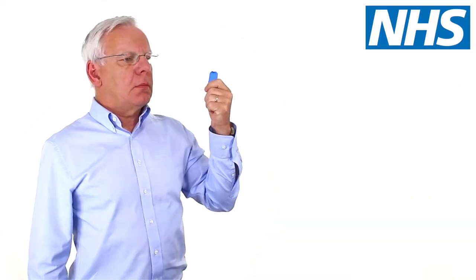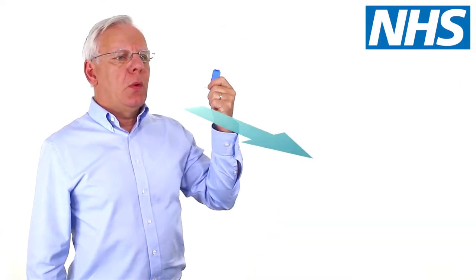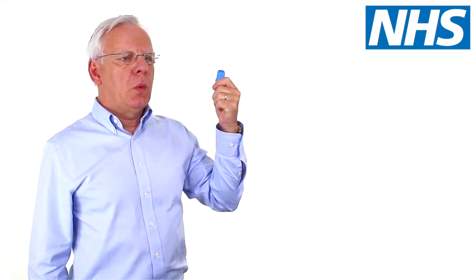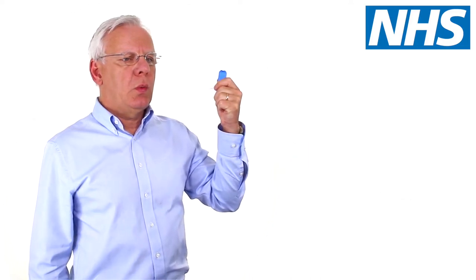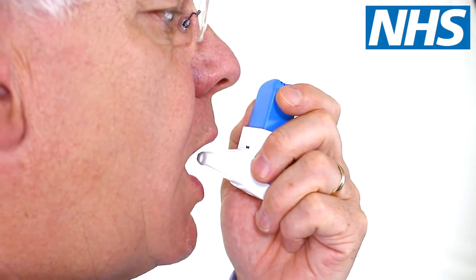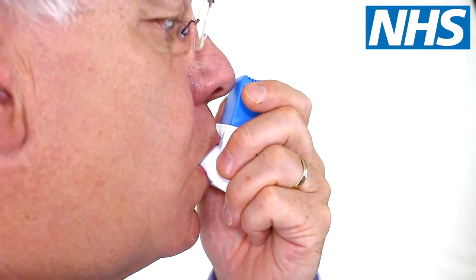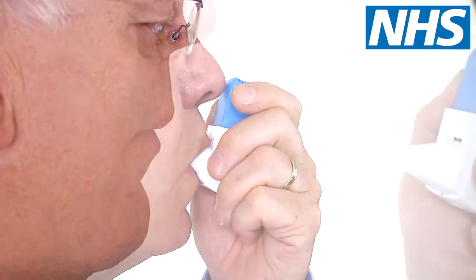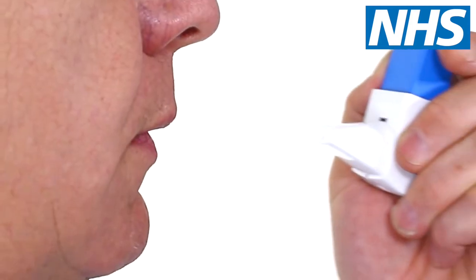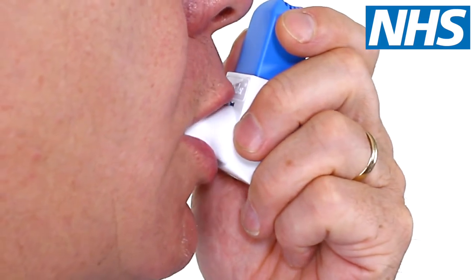When you are ready, breathe out gently as far as you comfortably can, but not into the mouthpiece. Now, place the mouthpiece into your mouth and between your teeth, but don't bite down on it. Close your lips around the mouthpiece to form a tight seal.